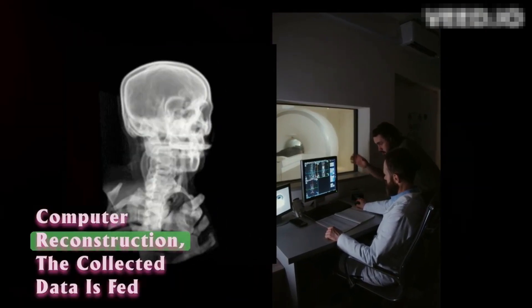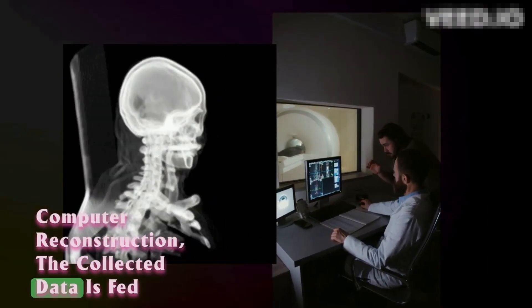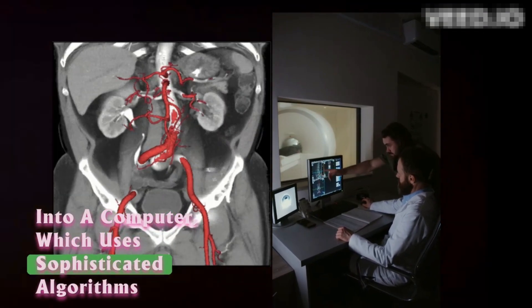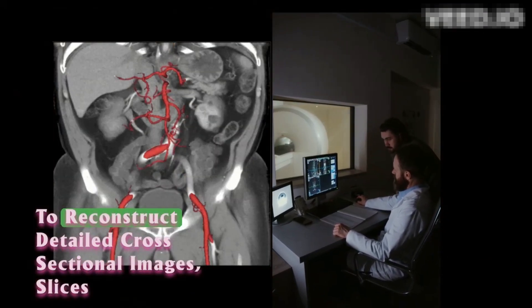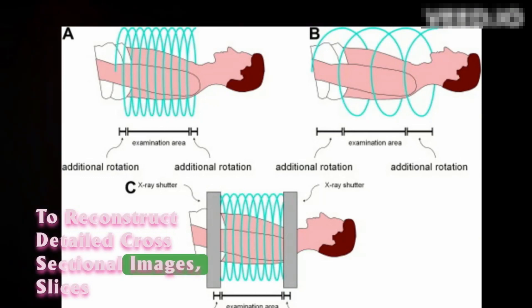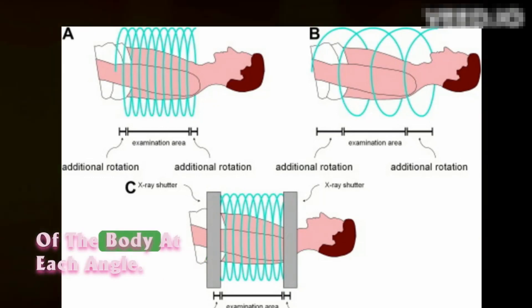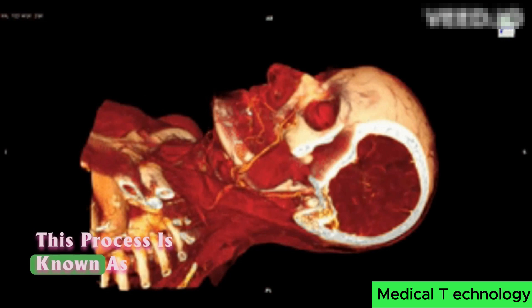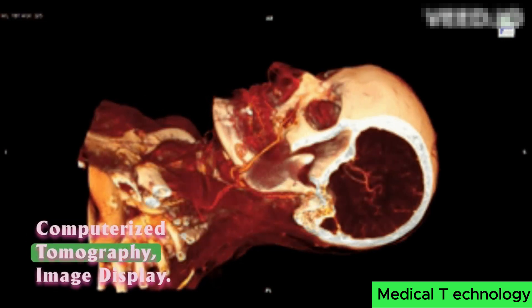Computer reconstruction. The collected data is fed into a computer, which uses sophisticated algorithms to reconstruct detailed cross-sectional images — slices of the body — at each angle. This process is known as computerized tomography.